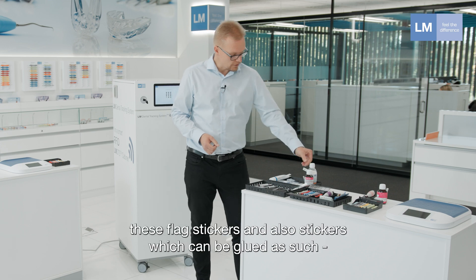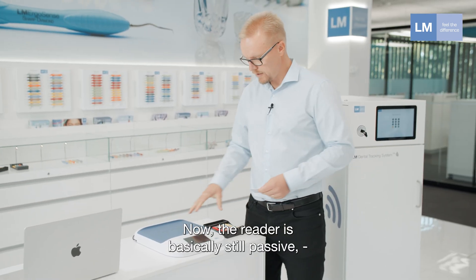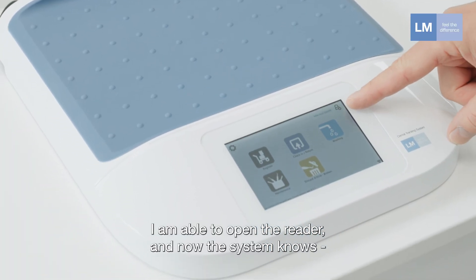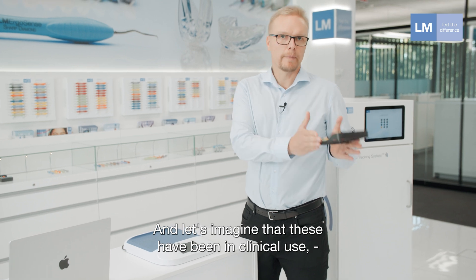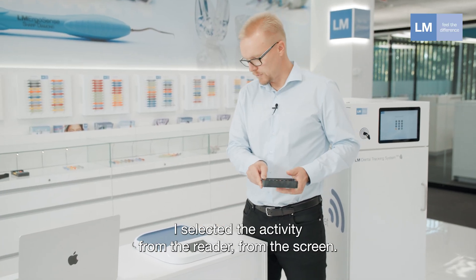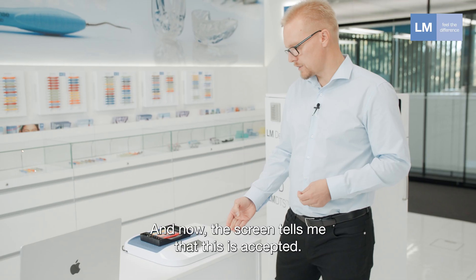We have different kinds of stickers available: flag stickers and stickers that can be glued directly on top of sales packets. Regarding the readers, the reader is passive until I enter my PIN code or ID card, which opens the reader and lets the system know who is using it. Let's imagine these instruments have been in clinical use and I'm returning them to the reprocessing center, so I'll start with the return activity.